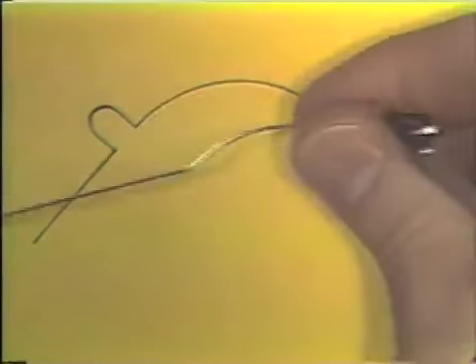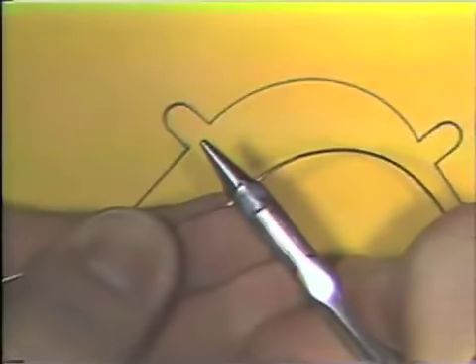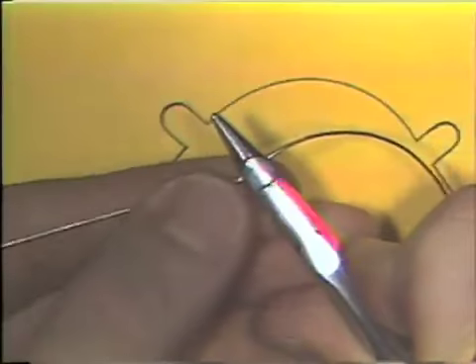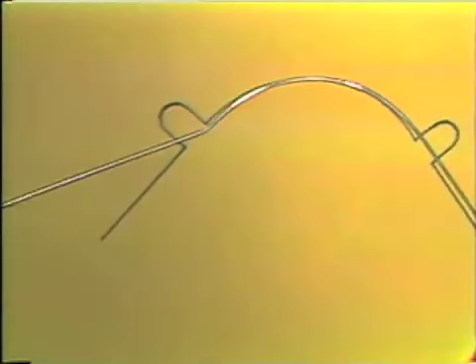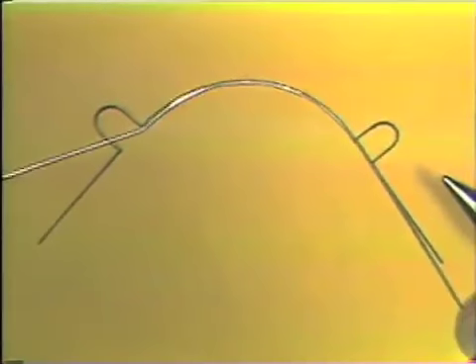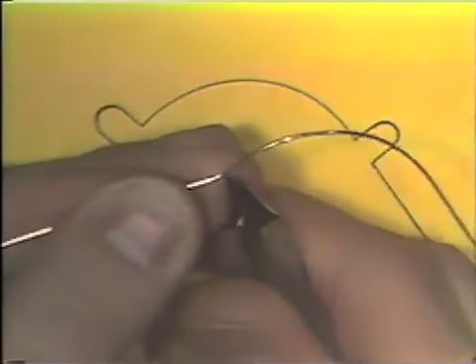Therefore, it is a good time to make the correction by placing the wire in the flat base portion of the plier and bending it slightly downward or upward, as the case may be, so that you end up with flatness. Contact here and contact here. The right angle bend is completed.